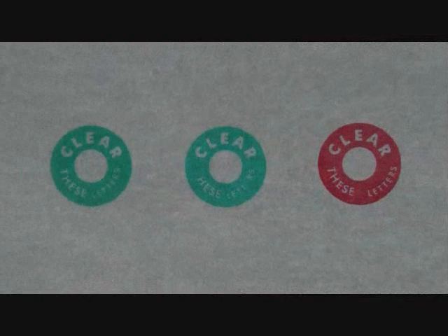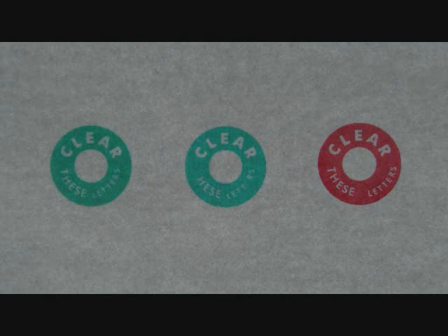If you see two greens and one red, your brain is turning off the input from your right eye and you do not want this to happen. You will also notice the words clear these letters will have missing letters if suppression occurs.